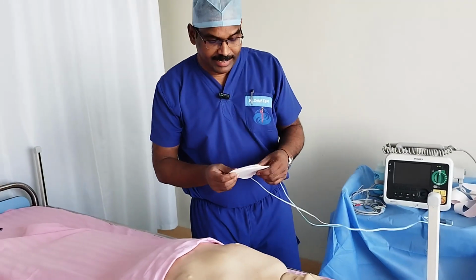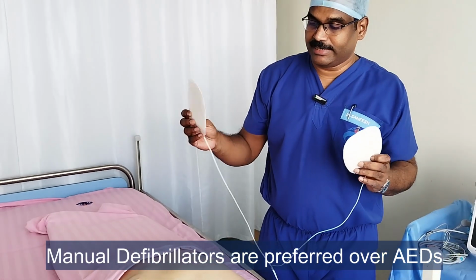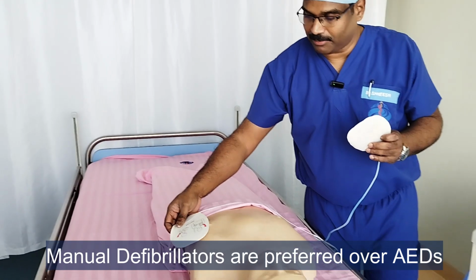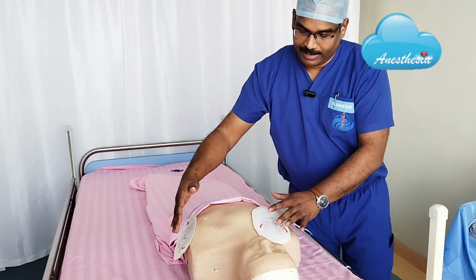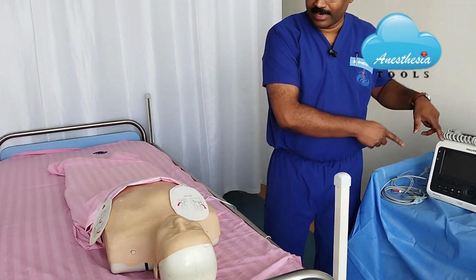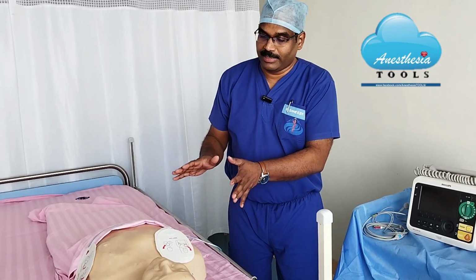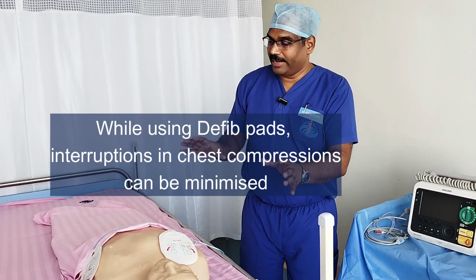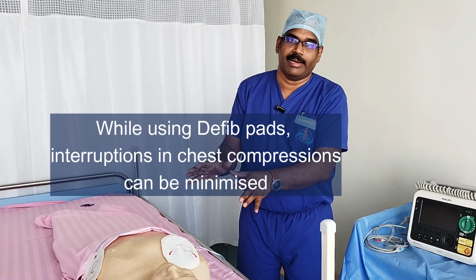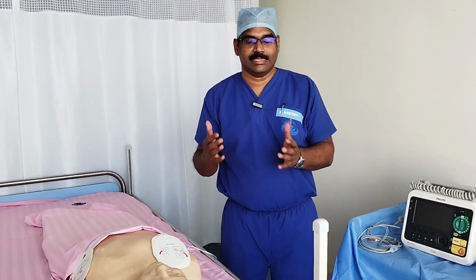If you are using AED or a manual defibrillator with pads available, the advantage is without interrupting the chest compressions, we will be able to attach the pads, and including the charging of the defibrillator we can do without interrupting the CPR sequence. So the moment the ECG analysis is over and it shows a shockable rhythm, we can immediately clear the victim, do the defibrillation or shock, and resume the CPR. That will improve the efficacy and improve the chance for return of spontaneous circulation.